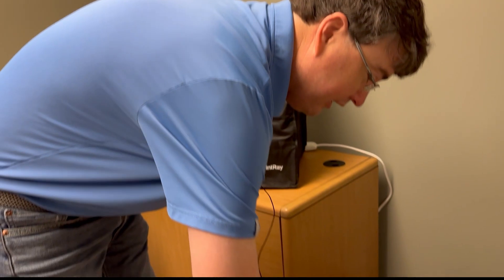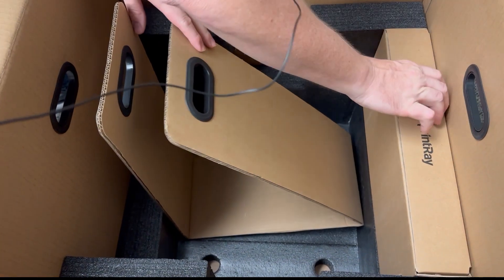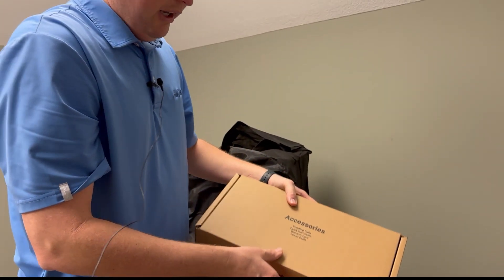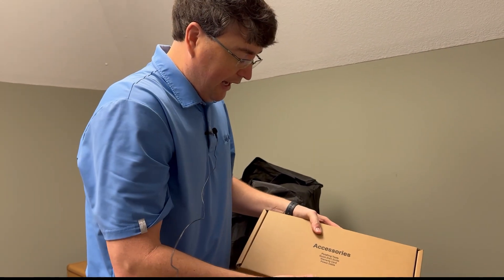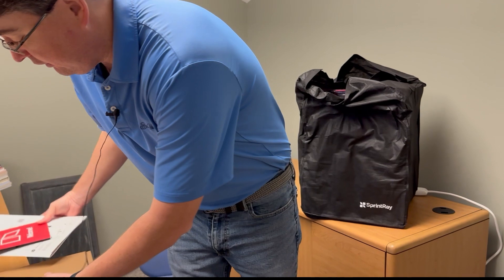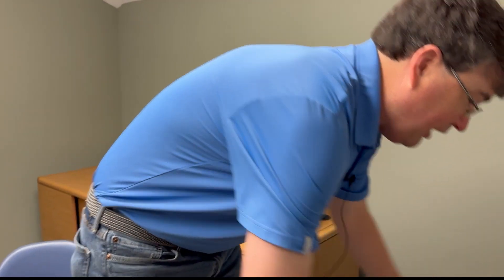Inside the box there's a little Sprint Ray box — I bet it's full of accessories. And there you go: accessories, finishing tools, quick start guide, another quick start guide, warranty guide, and power cord. We'll save that for later. Put all that over here. Save this box — do not throw it away.